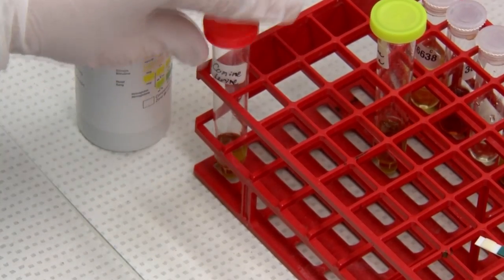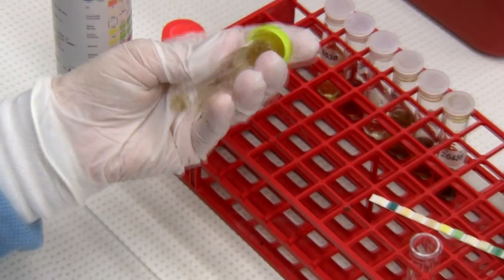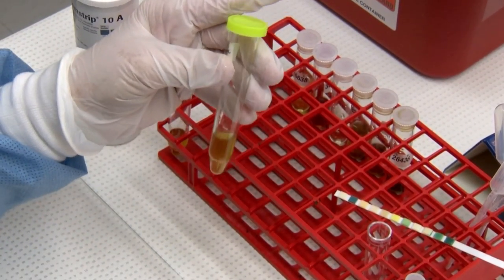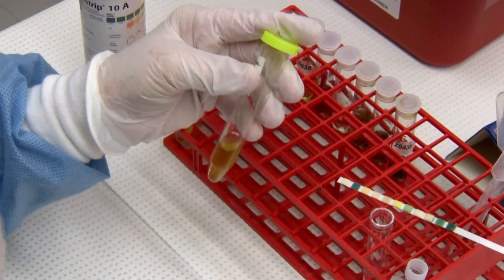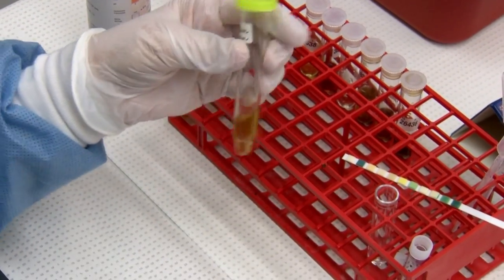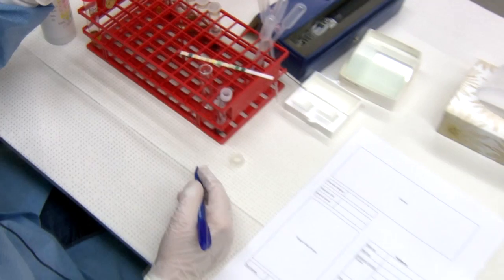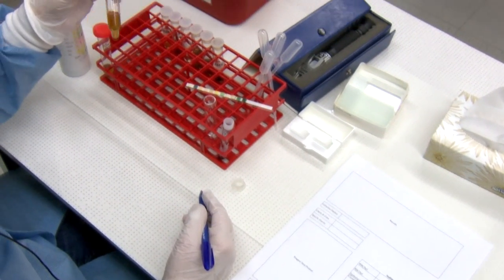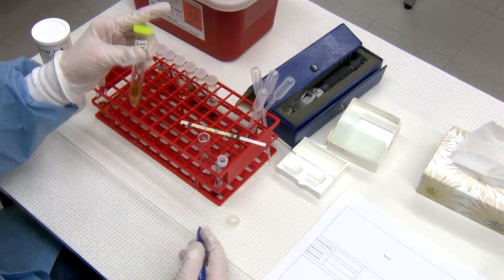When you're doing your urinalysis, you want to note your colour and clarity and record it on your submission form. For colour, you call it whatever you see — so this one would be slight cloudy dark yellow.